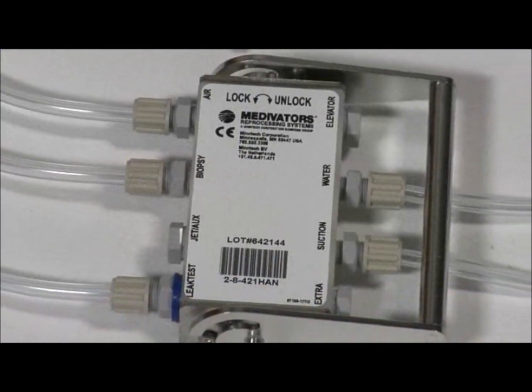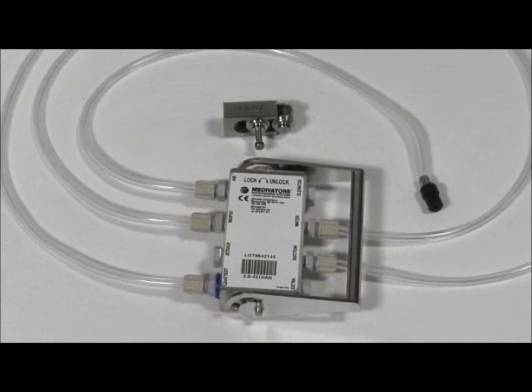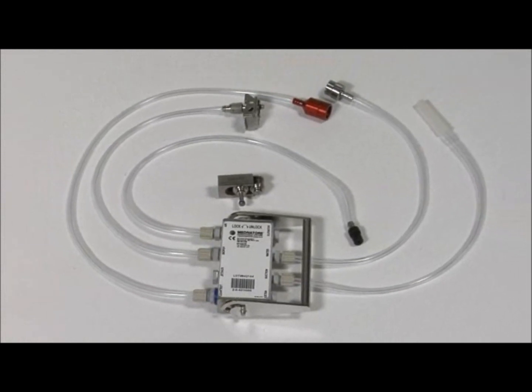Advantage Plus hookups connect to the channel manifold and are designed with channel-specific tubing and connectors, which are labeled on the connector block.